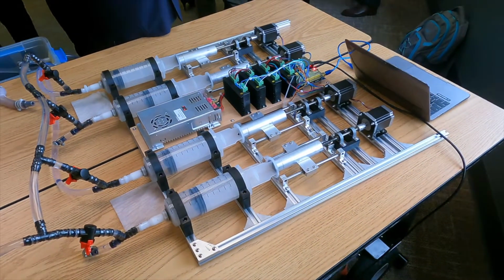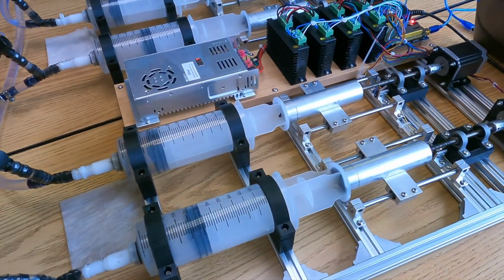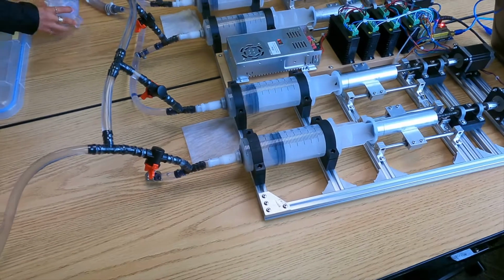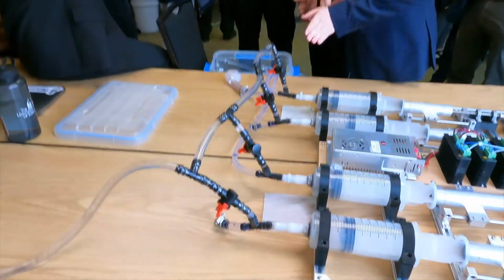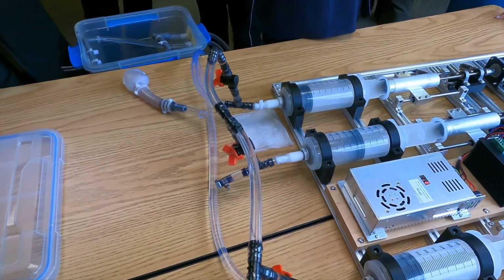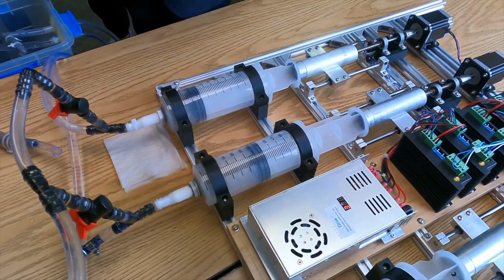To conduct magnetic resonance imaging, commonly referred to as MRI, for cardiovascular imaging models, traditionally, human subjects are needed. These people need to stay still and refrain from breathing as additional motion can distort the images. The solution to this is to create a pump and subsequent phantom heart which can emulate cardiac motion so that imaging research can be conducted without the need for volunteers.